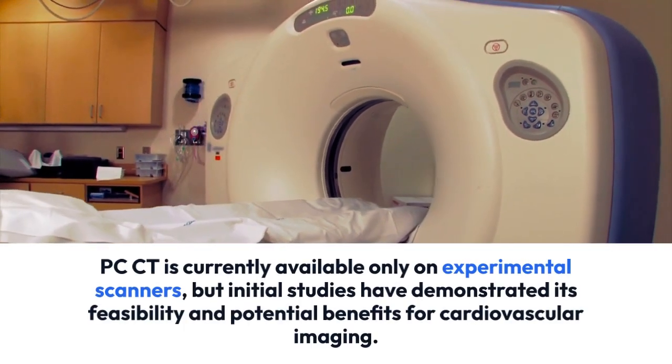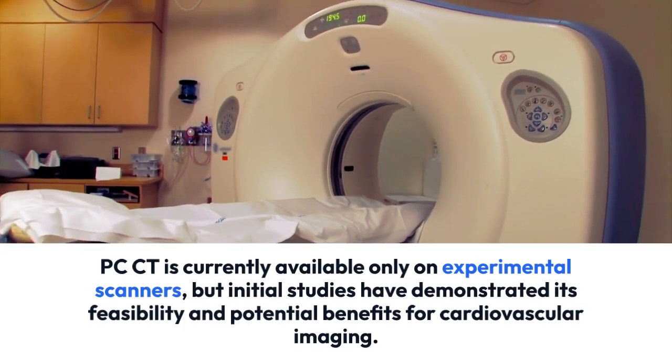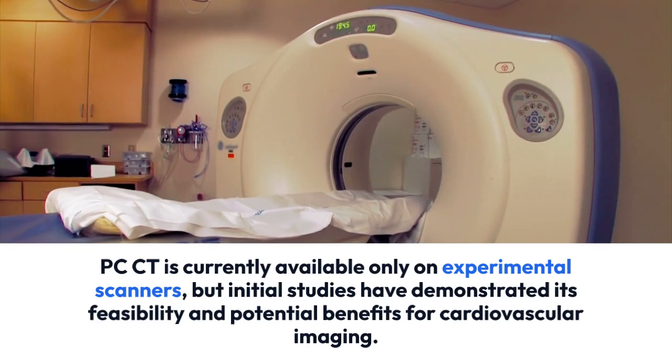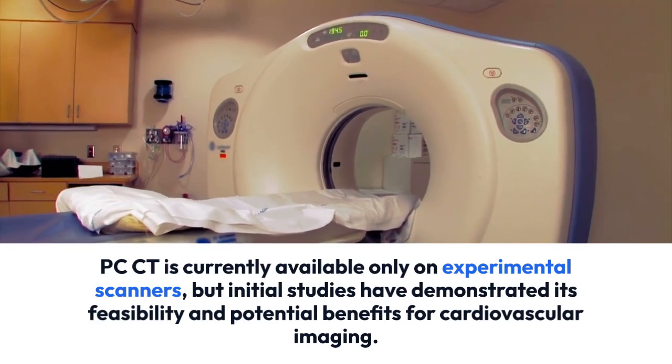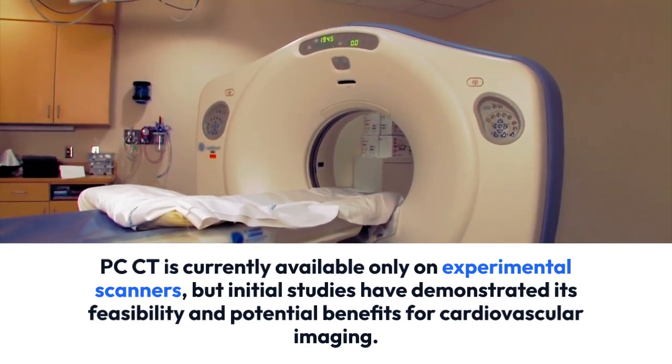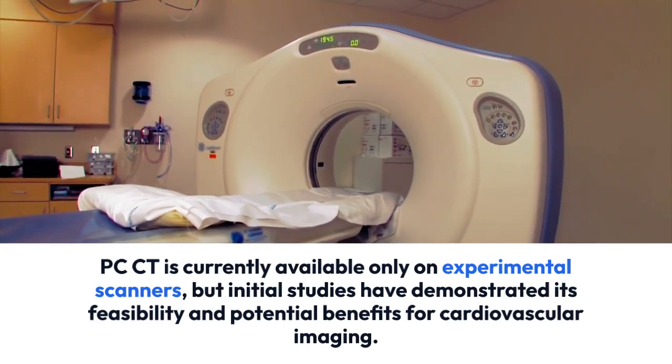Photon Counting CT is currently available only on experimental scanners, but initial studies have demonstrated its feasibility and potential benefits for cardiovascular imaging.